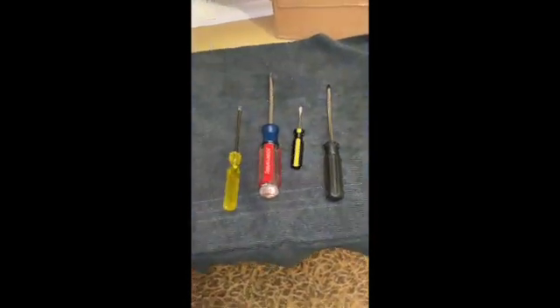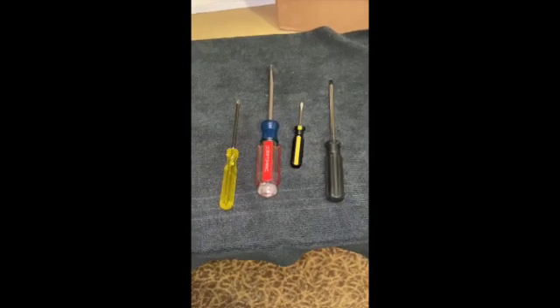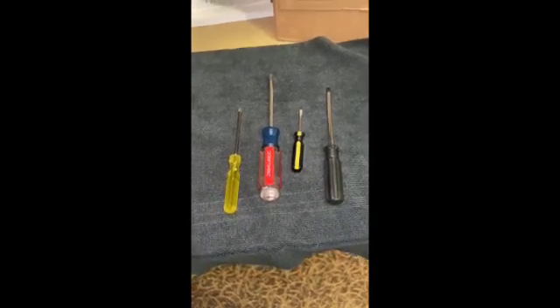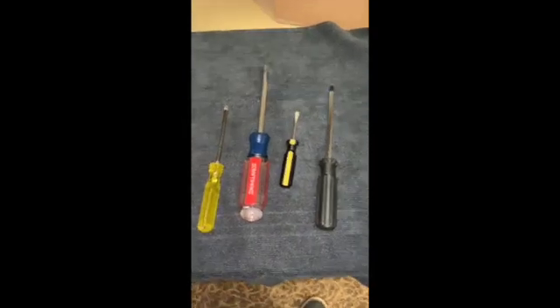There are various reasons why we might need to get inside of a CEREC unit. If the CEREC unit is off warranty, we're free to go inside and make some modifications. Sometimes we have to go in because something's not working right, and other times we want to upgrade things.